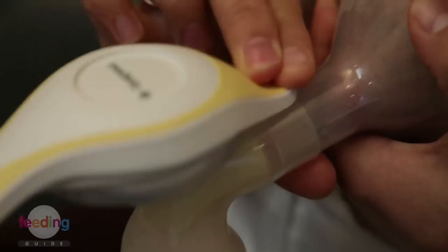I've been pumping for about a minute and a half and I've been getting a little bit of milk come out, but I just need to pump a little bit more until I get the full letdown. Some women can feel the letdown on the other breast, and that's the signal that the milk is coming through and you can move to the long pumping action.